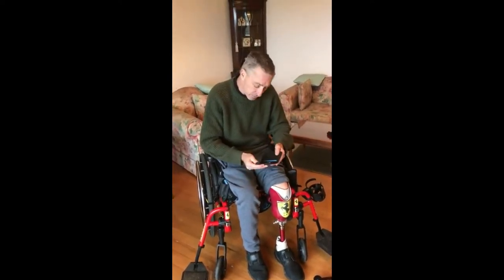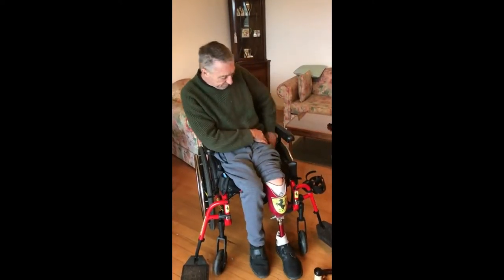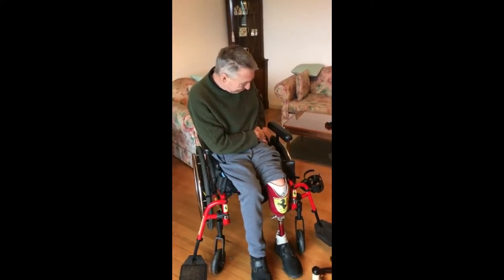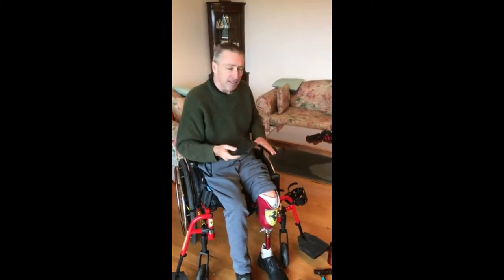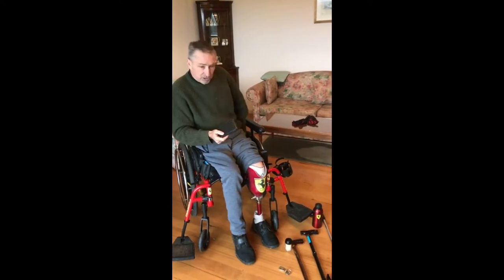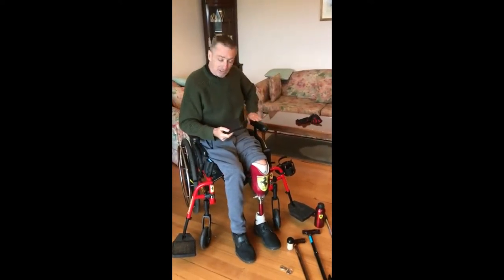I have another pocket here where I keep my house key. Continuing on from that, the wallet — we're all prone to our money, our credit cards, licences if we're lucky to have one. It sits in the back here and cannot be taken from over the chair because my arm is here, so it is protected.